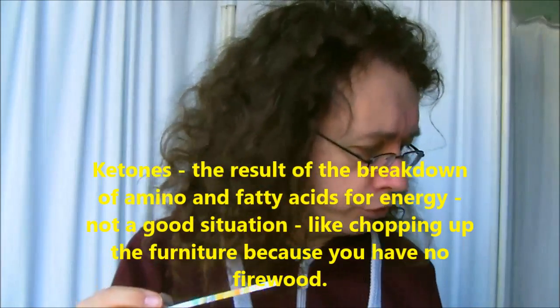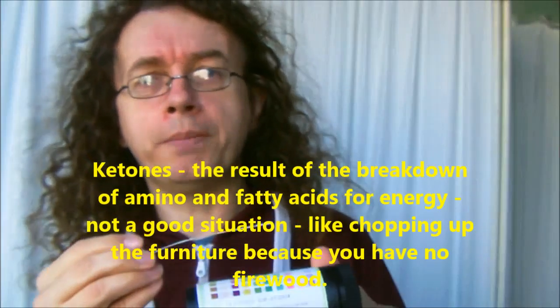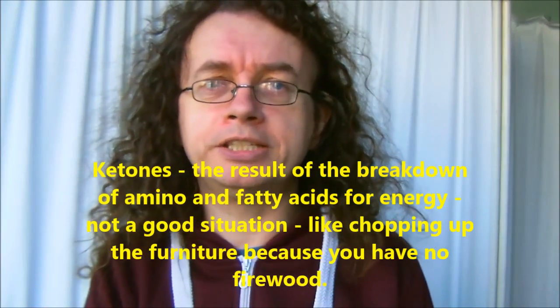Next one along is ketones. Ketones are a reliable measure of diabetes or starvation — it's when your body starts to break down fat because it can't use sugar, either because it's not there or because sugar is not being efficiently moved in and out of the body. My ketones are absolutely fine.